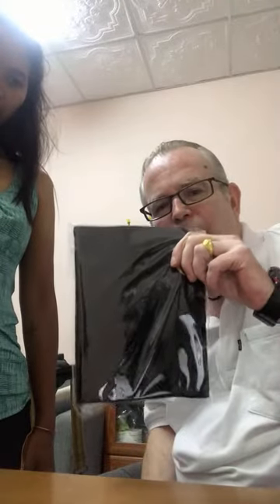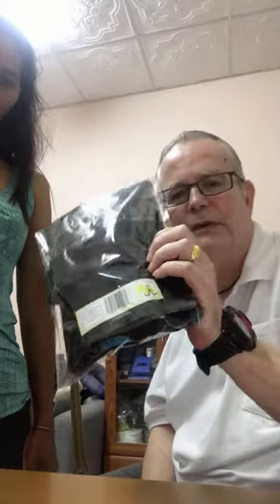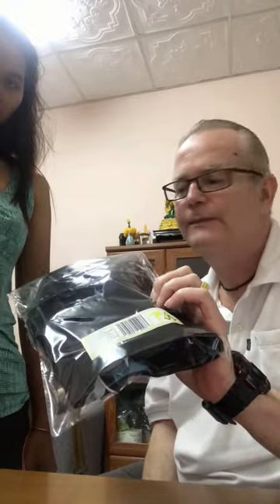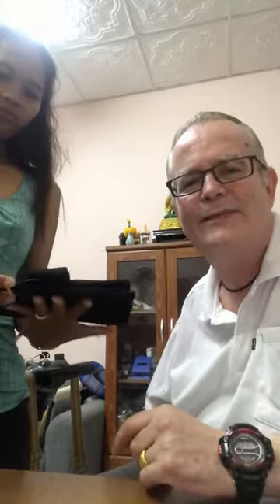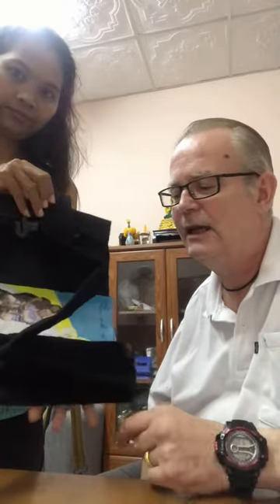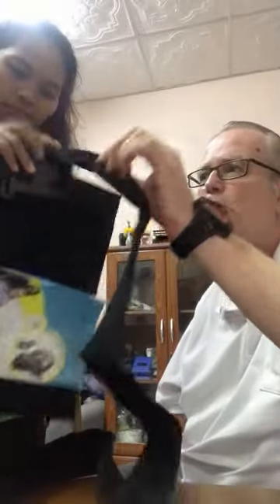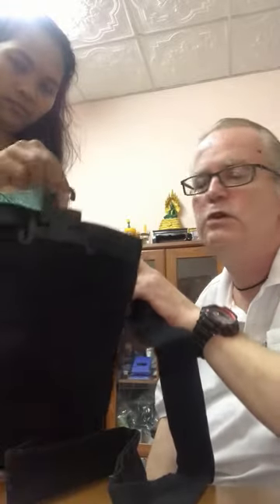This is the TP bag — this is what you will actually get in the post if you choose to purchase this one. It's got the information on the back. I'm a little bit restricted because I've only got use of one arm, but this is the TP bag and it comes with a pipe that you can detach from the main bag, and there's a little hanger here that you can use if you so wish.